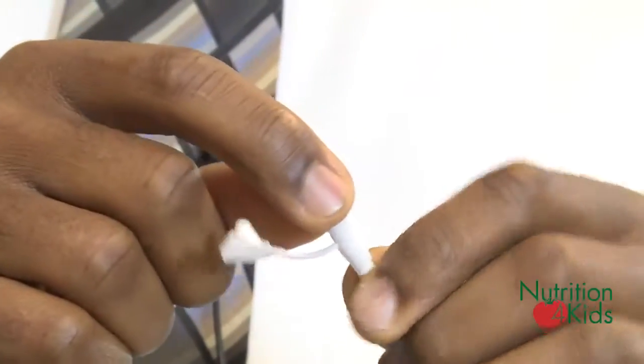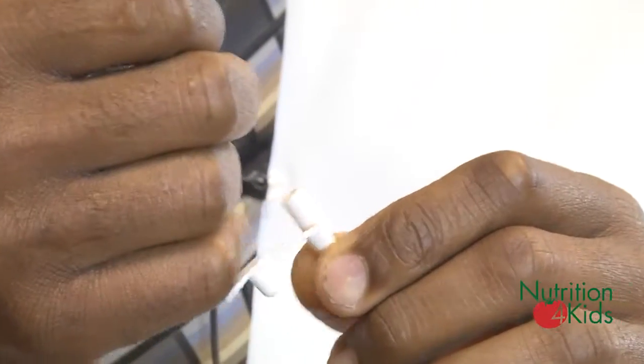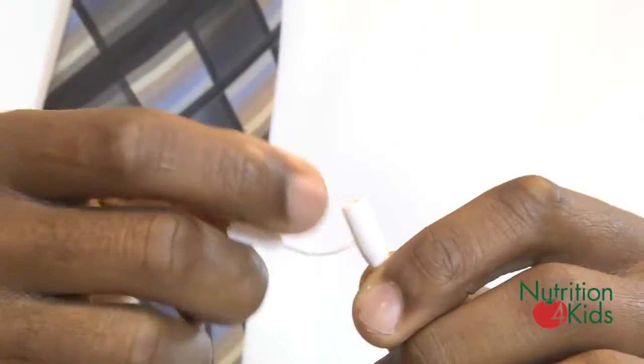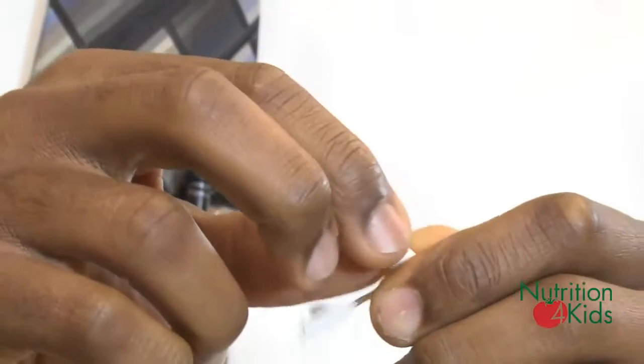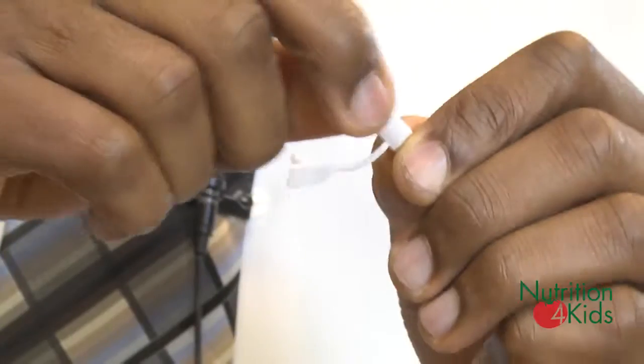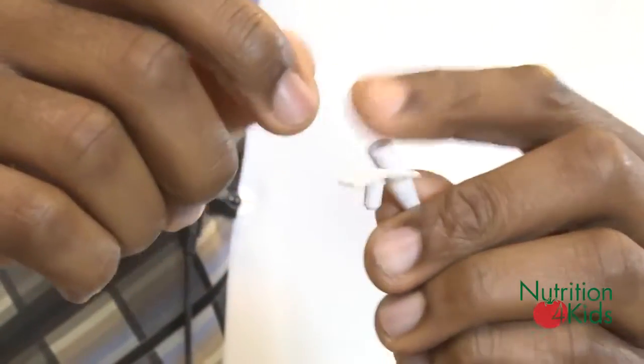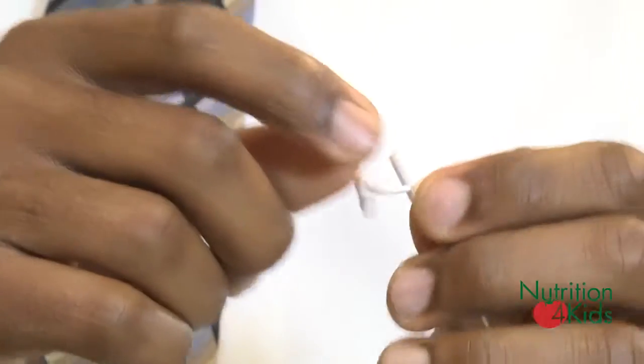This part of the tube is the connecting part where you connect it to the feeding bag — the tube that comes from the feeding bag. Most feeding bag connectors are able to connect to this. Sometimes you may encounter a bigger feeding bag connector that will need an adapter, and your doctor will provide you with an adapter to help with this connection.